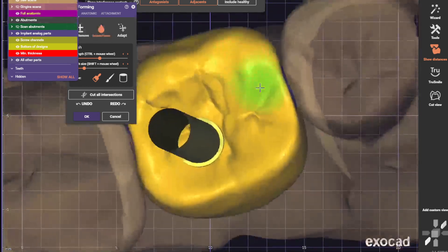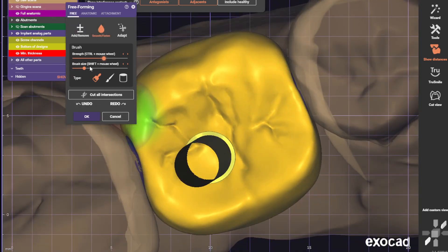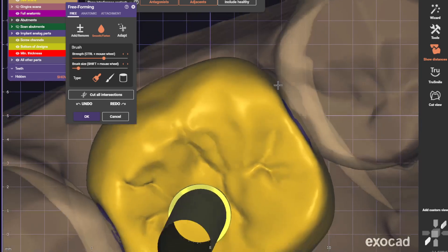Come look from above, make sure we don't have these sharp angles that we have right there. Smooth that up.